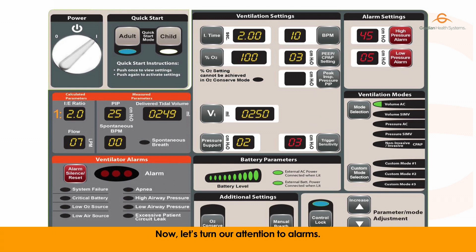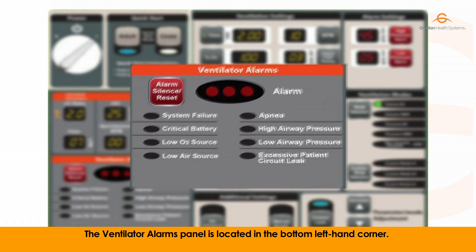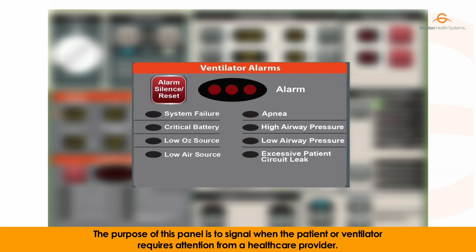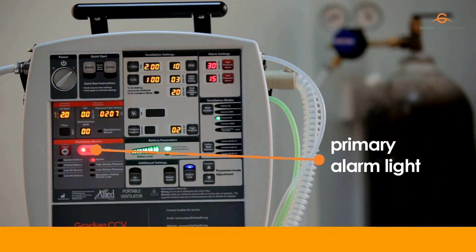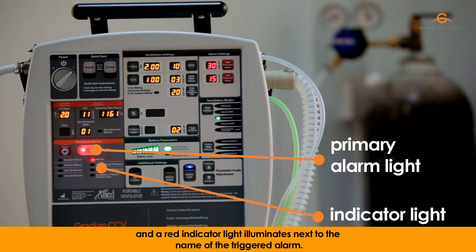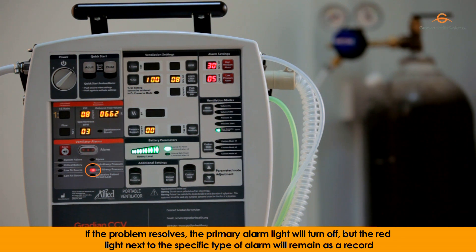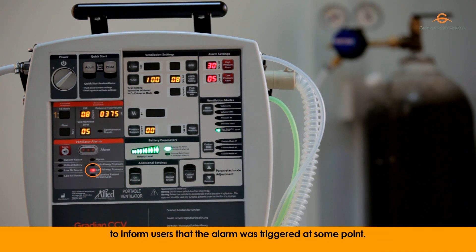Now let's turn our attention to alarms. The ventilator alarms panel is located in the bottom left-hand corner. The purpose of this panel is to signal when the patient or ventilator requires attention from a healthcare provider. When the ventilator detects a problem, the alarm siren will sound, the primary alarm light will turn on, and a red indicator light illuminates next to the name of the triggered alarm. If the problem resolves, the primary alarm light will turn off, but the red light next to the specific alarm will remain as a record to inform users that the alarm was triggered at some point.